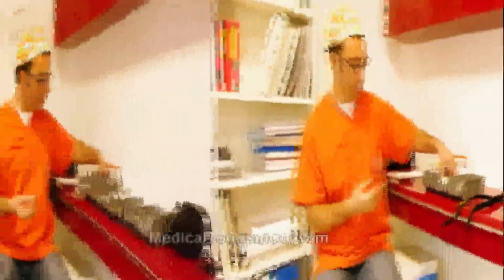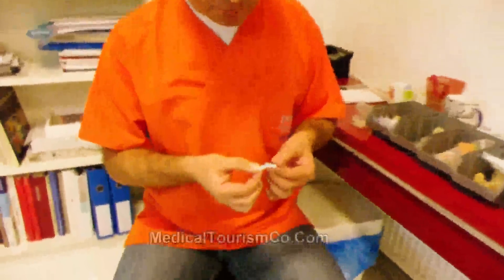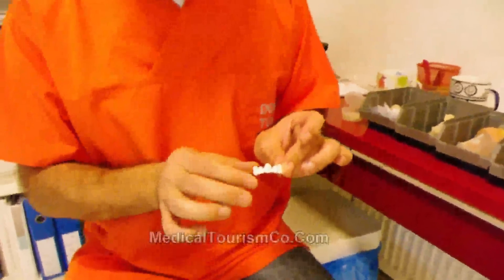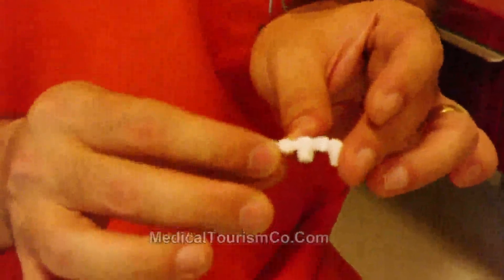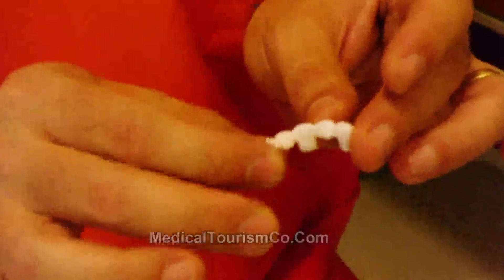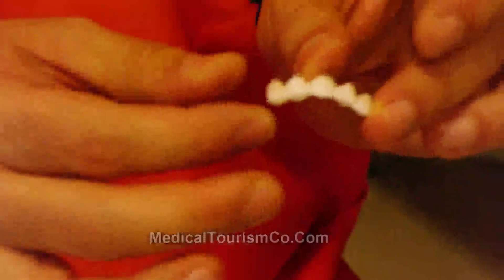On zirconium — this is a framework made of zirconia. Zirconia is a highly biocompatible material and is three times more rigid compared to metallic works.